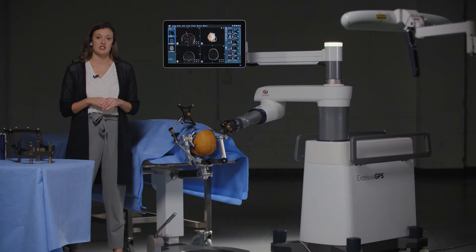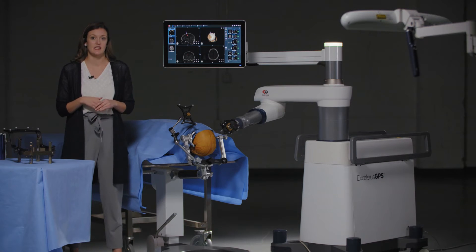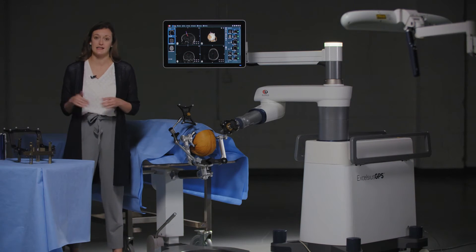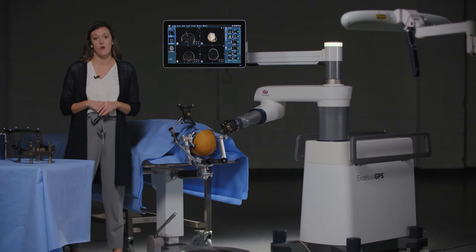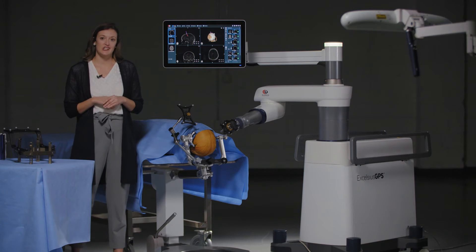Because the stand is positioned underneath the table, intraoperative imaging systems can be moved easily in and out as needed, freeing up space in your OR. Now let's take a look at the cranial solution software.